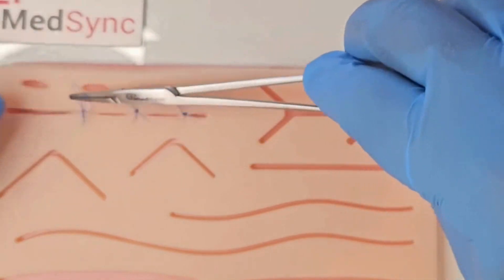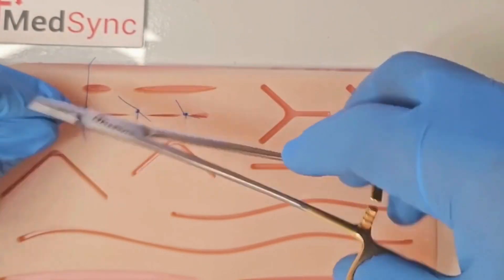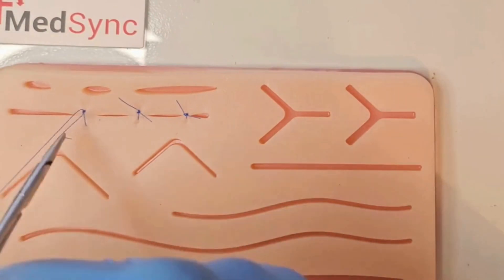It's followed by a reef knot, which is a single revolution around the needle holder. The suture ends must alternate in position each time.